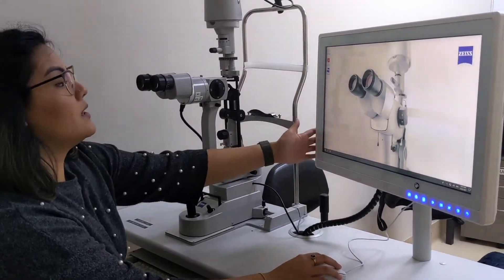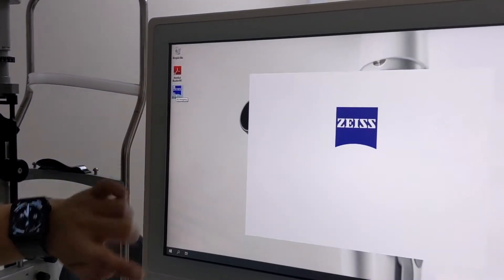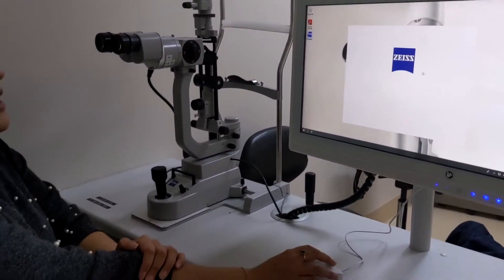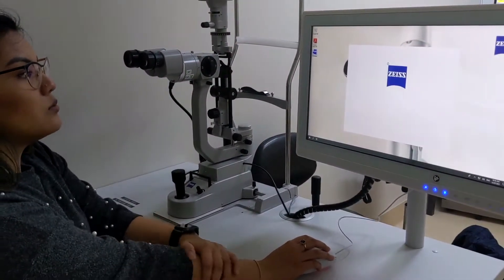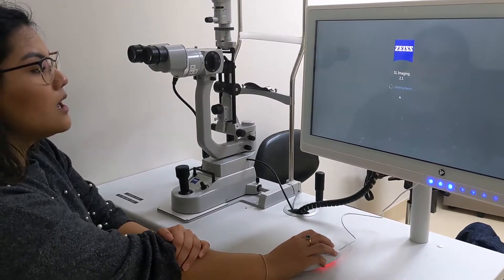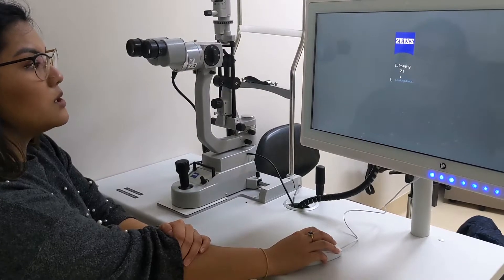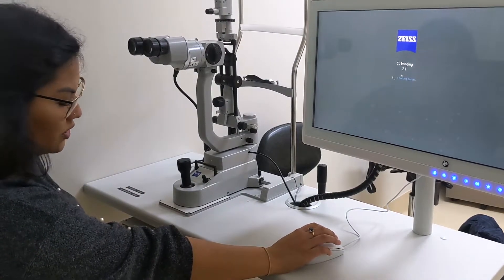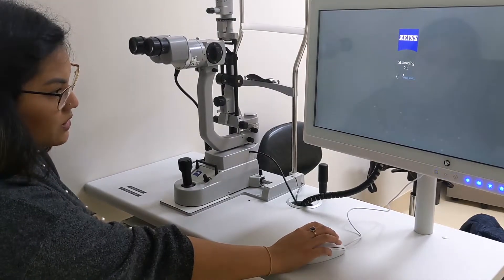Once you're on that screen, open the SL imaging program right there — it takes a couple of seconds to boot up. At the opening screen, enter the password for the SL imaging program, which is four zeros. You only have to do that once when you log on.